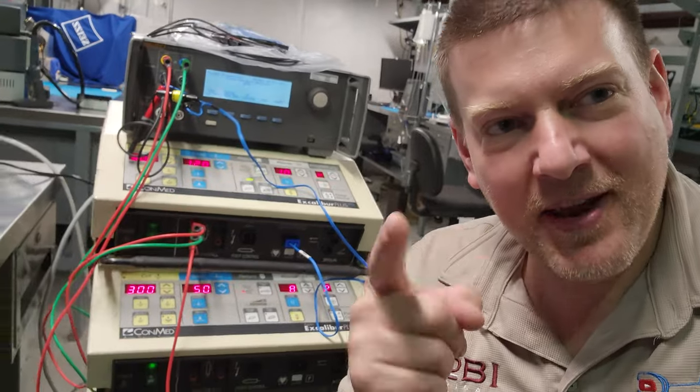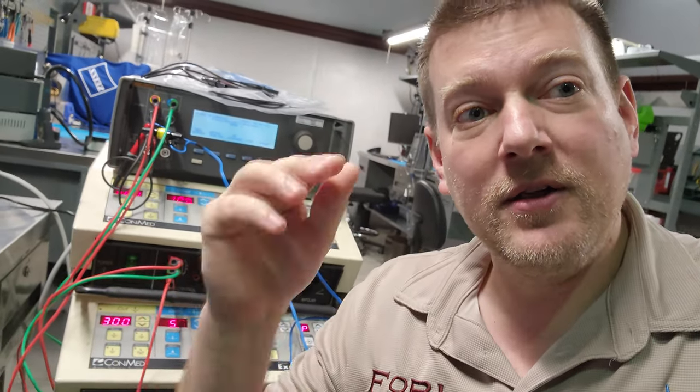Hey everyone, good morning. I want to show you guys an example of exactly what I was talking about. I tell people all the time that they should start at the maximum of any energy device or motor start, at the maximum speed while you're testing the device and then work your way down.